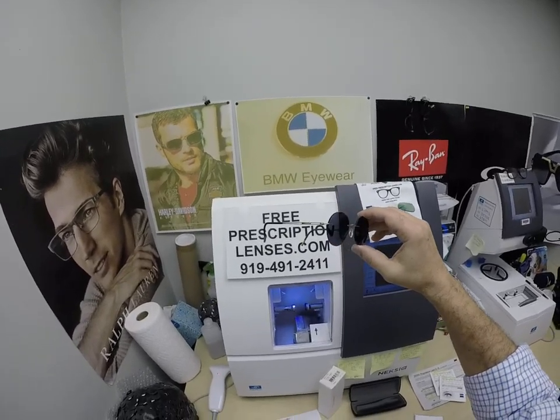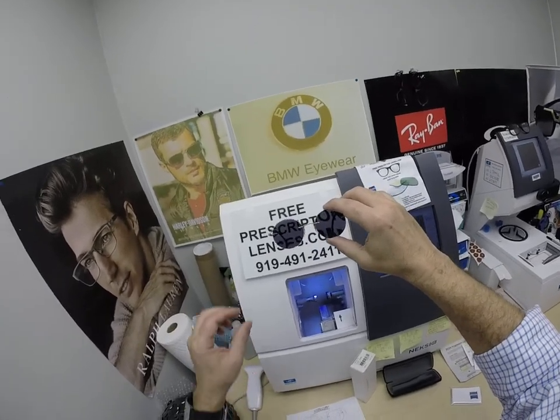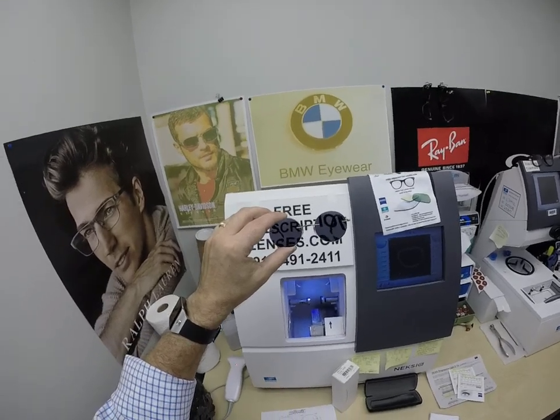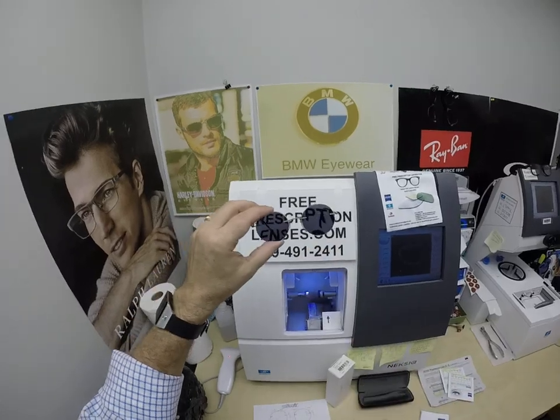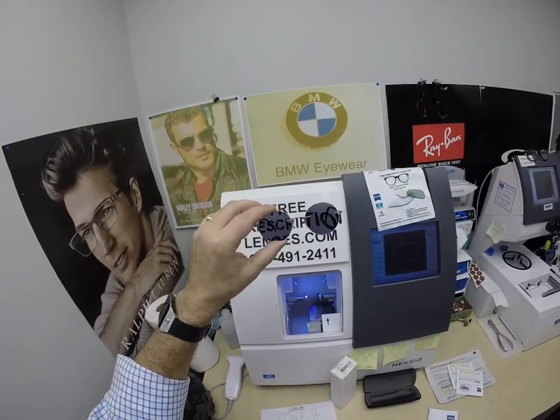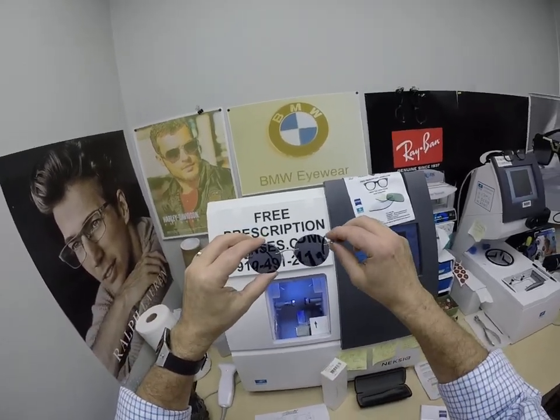For anyone who lives in a hot climate — California, Texas, Louisiana, Florida — or if you just want the darkest lens possible, go with the PhotoFusion Extra Gray. That adds $129 to the cost of the frame. Lenses are free for single vision. The frame itself sells for $299 and comes with one free pair of clear single vision prescription or non-prescription lenses.